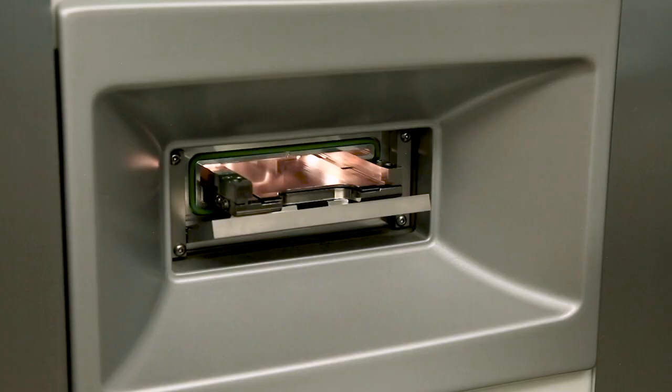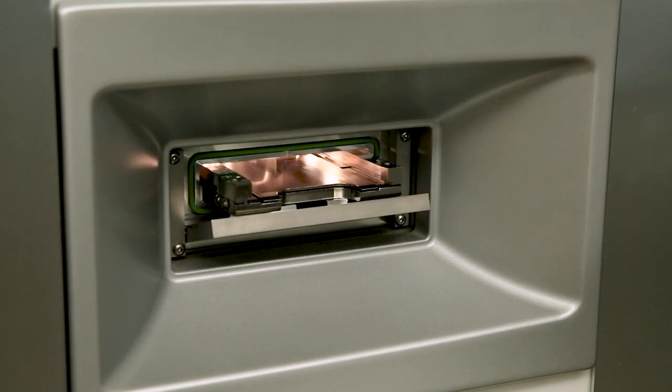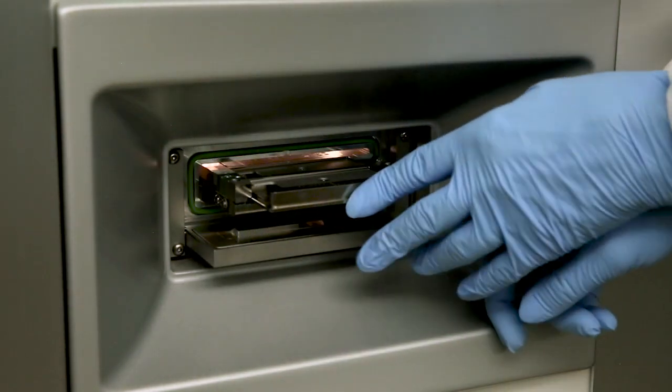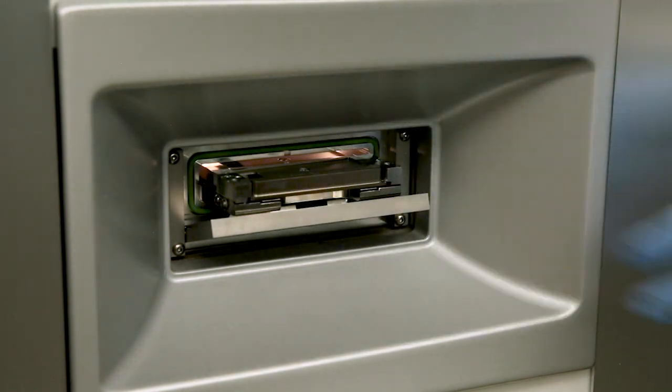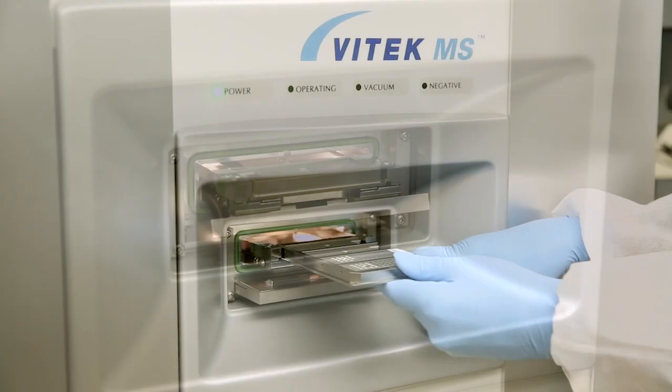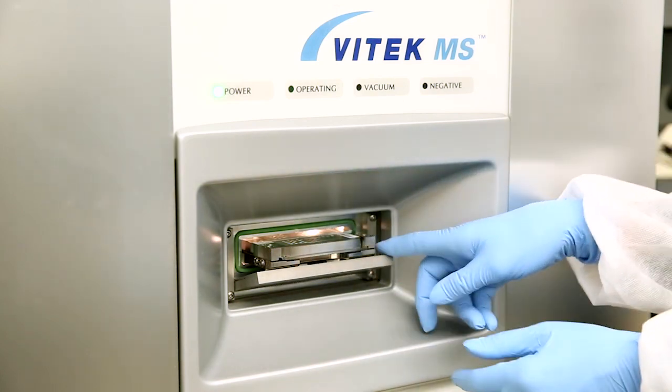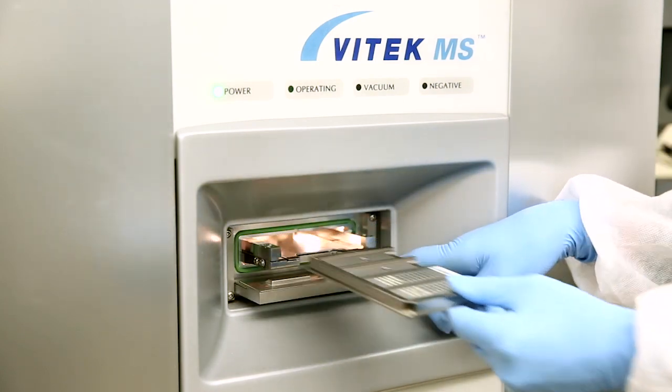Load the slides into the instrument within 5 minutes of the door opening, since the door closes automatically after 5 minutes. Gently slide the adapter into the carrier until you meet some resistance and it will go no further. As you slide your fingers across the back edge of the adapter, it should feel slightly concave. Note: the adapter can be put in backwards but will feel more convex. Testing will fail if the adapter is loaded incorrectly.